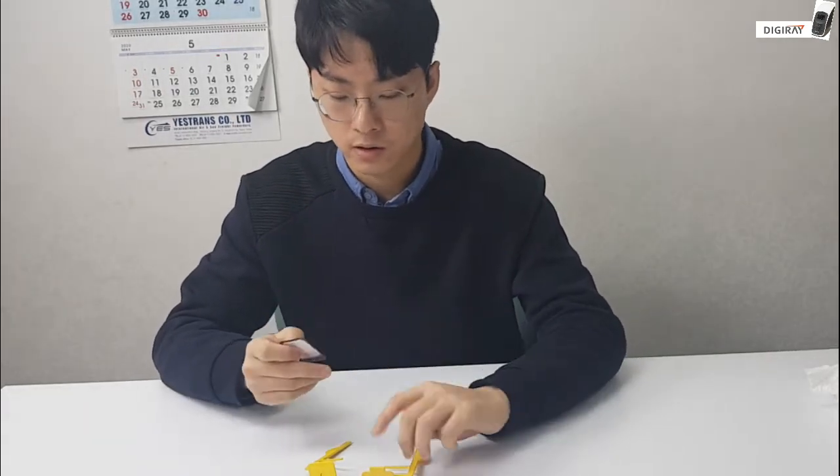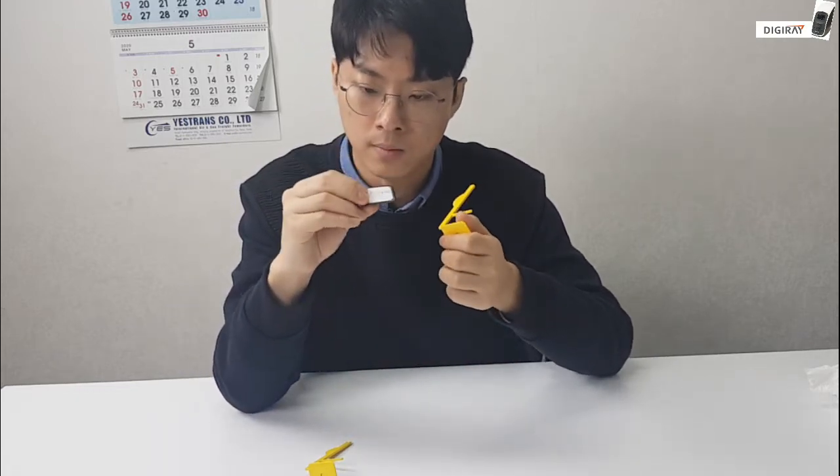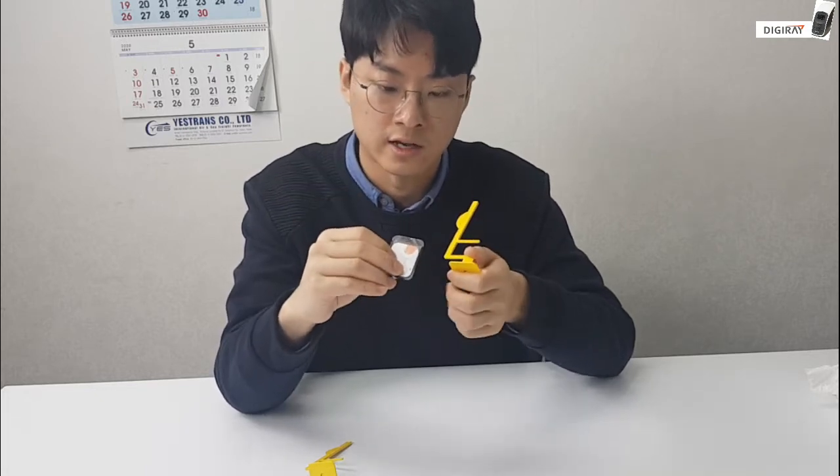To use the bi-wing, just like the standard XCPs, you have to insert the IP that's inside the protective cover and inside the biting pad.